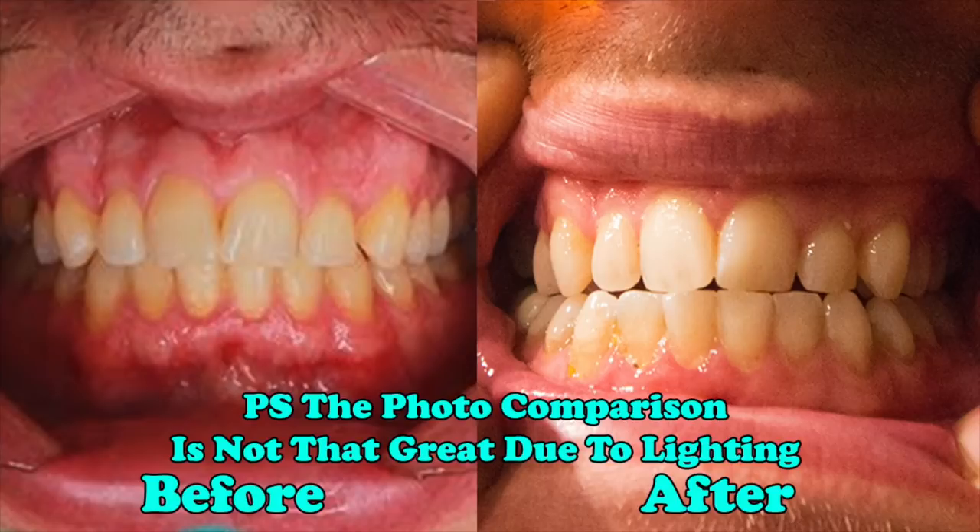From my own personal experience I highly recommend them, and I've definitely noticed some significant improvements with my teeth that were not straight at the top. After making this video I'll show you a photo of what my teeth looked like before and what they look like after. I wasn't going to show people until I'd fully used all of them for six months, but you'll be able to see significant improvements. Several people have actually complimented me saying they noticed improvements, without even knowing I was using braces.